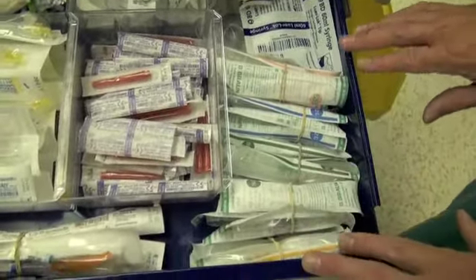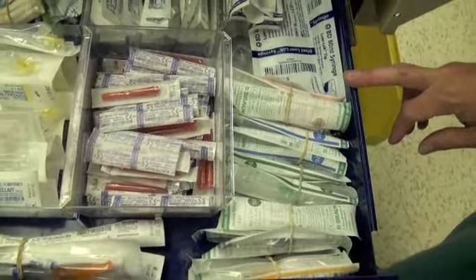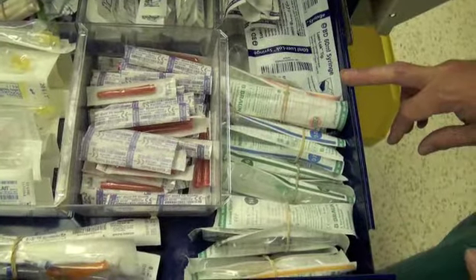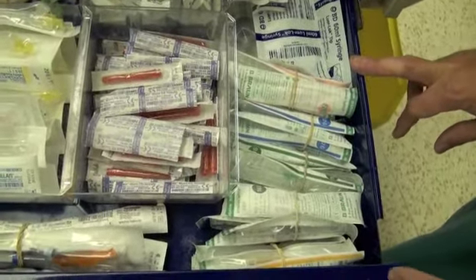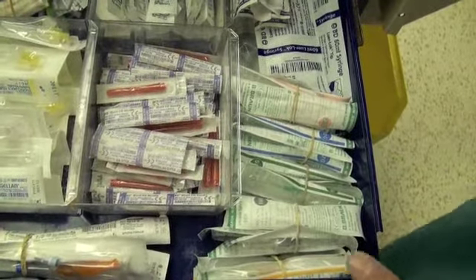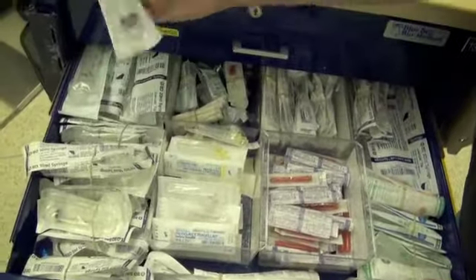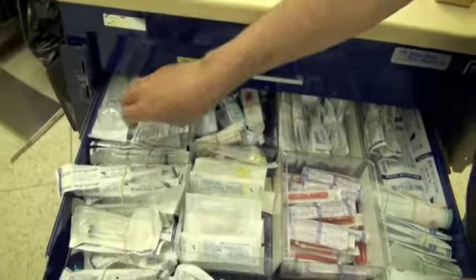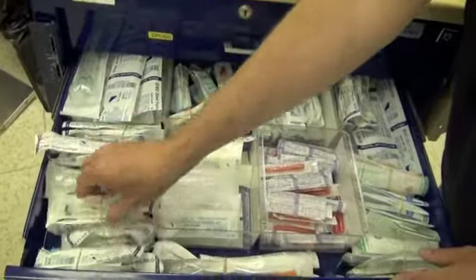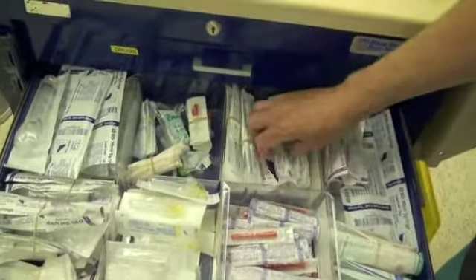I would suggest you take a few moments someday with us to go over the sizes and understand the color coding, because the color coding is fairly universal, and understand the differences in flow rate between the sizes of the cannulas. We have different sized syringes, 20 cc, 10 cc, 5 cc. At the back of this drawer, we have spinal needles.